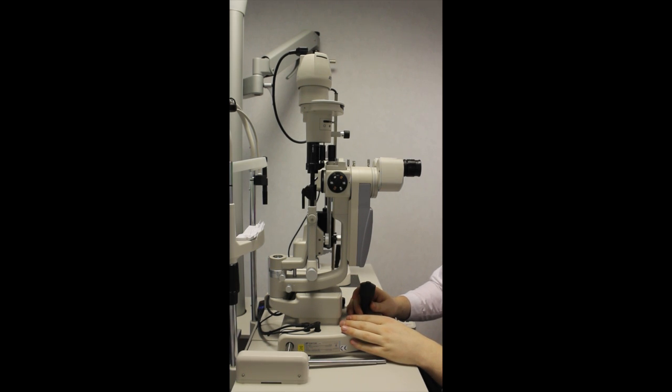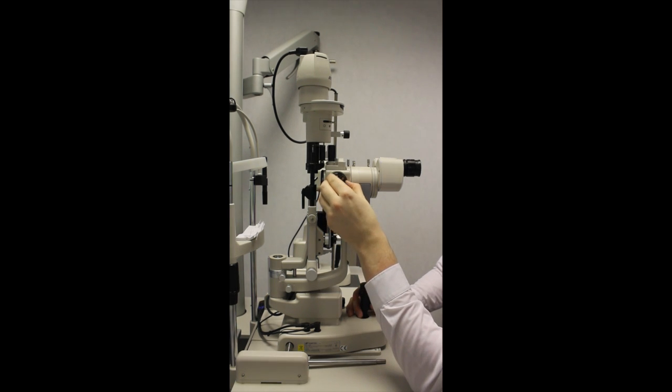However, high astigmatism cannot be compensated for. The observation system also enables you to adjust the magnification being used depending on the detail you are wanting to observe.